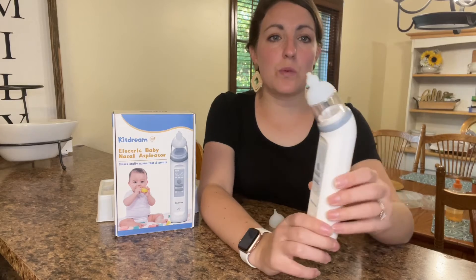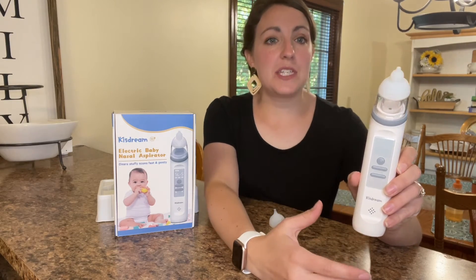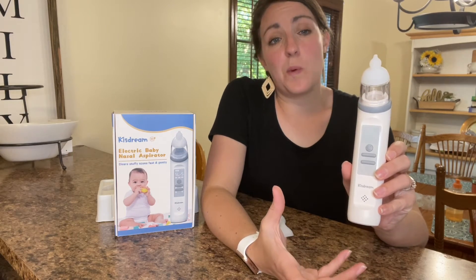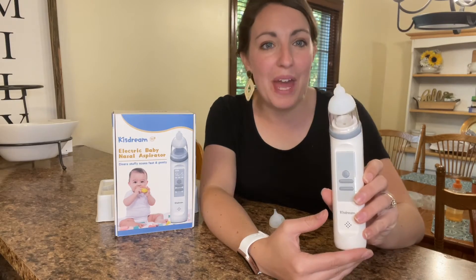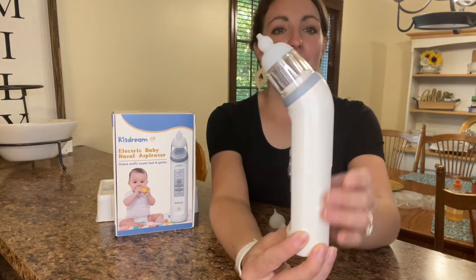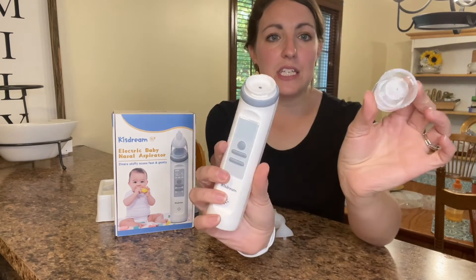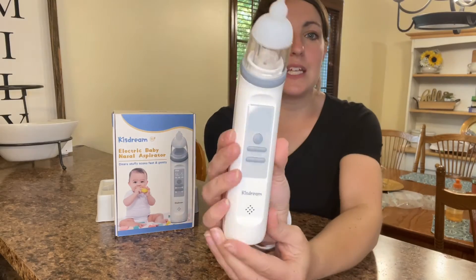This is something that is really necessary for anyone that has little ones or maybe watches other people's kids — just something to have on hand for guests when they come to visit. This is a great baby shower gift for any new parents. Check it out — it's a really great design, very easy to use with all of its parts.